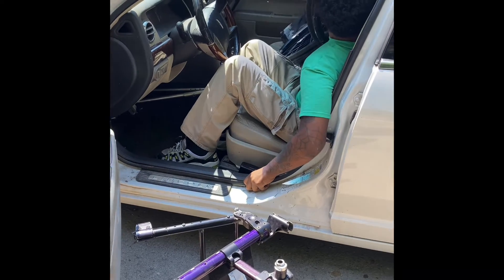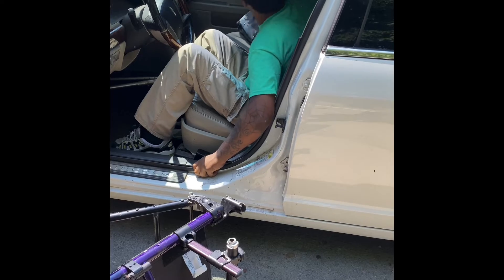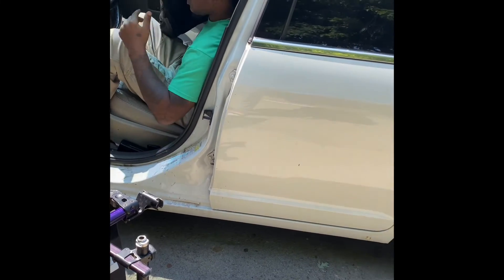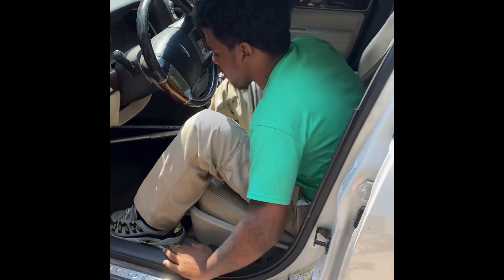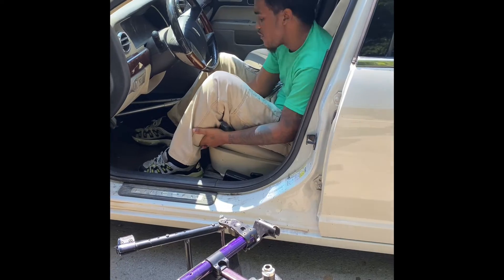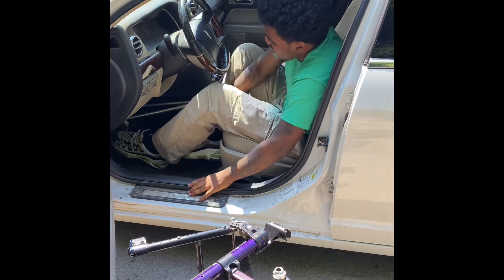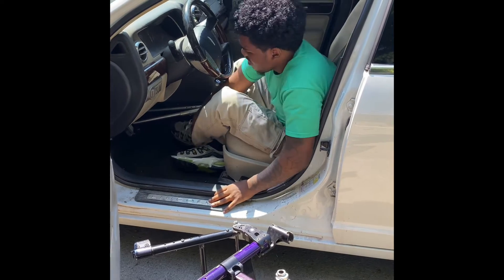Get situated, put my wheels in the back to make room for my wheelchair frame, cushion in the back, backrest in the back. Now you're going to see me fold my legs. I cross my legs so that I can make room to get my wheelchair across my chest into the passenger seat.